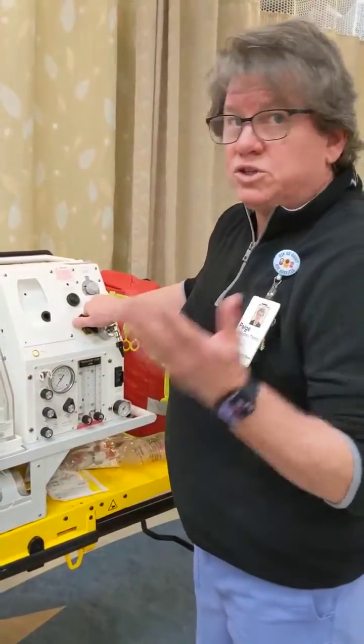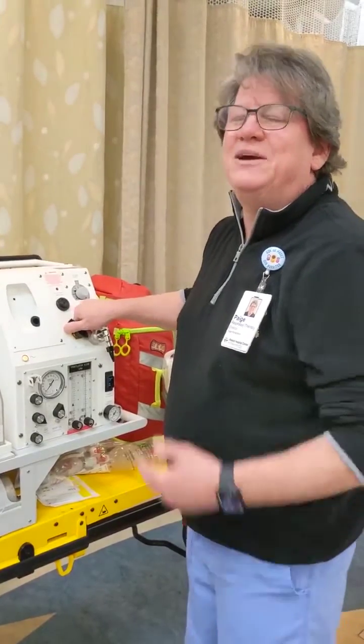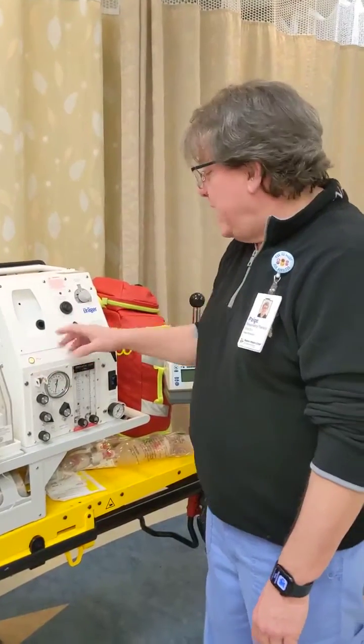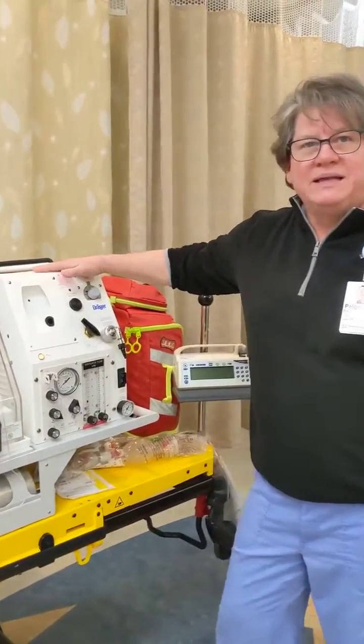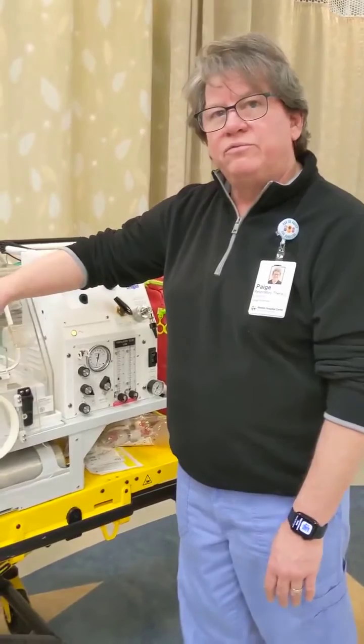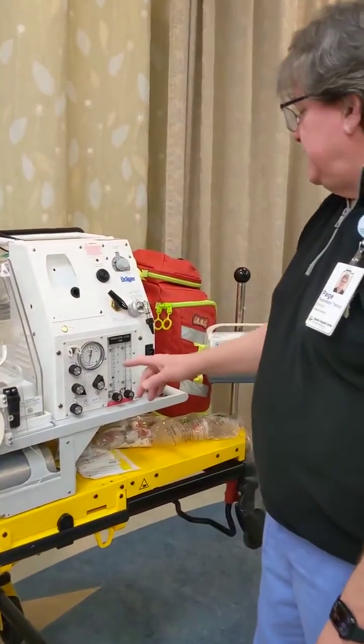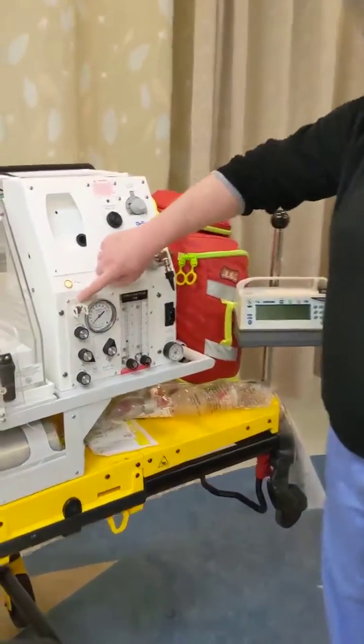Everything else is just going along, pack them up, package them up, and bring them home. I'm going to give a cut and we'll switch over to this. Okay, now if we want to place our baby in CPAP mode, it would be the exact same setup that we have right here with our circuit, with the exception of we're going to switch this switch right here.